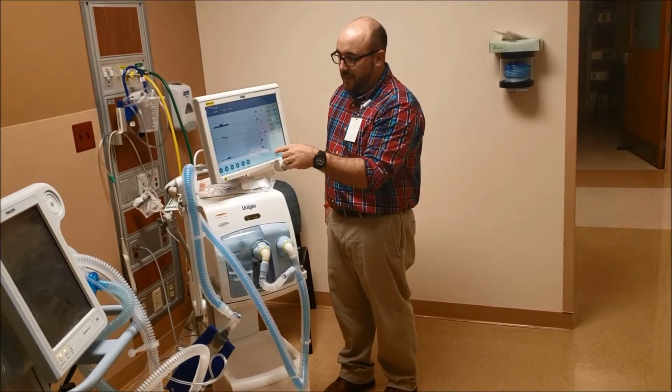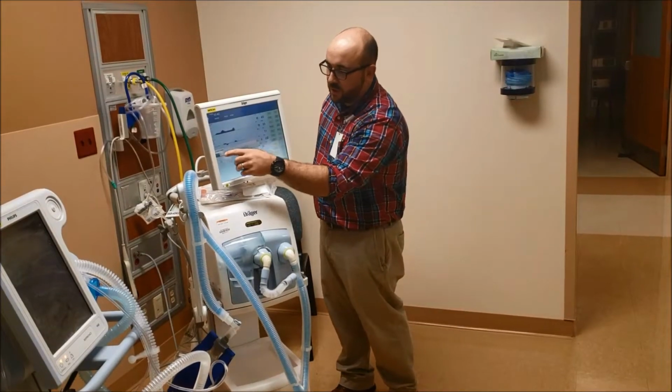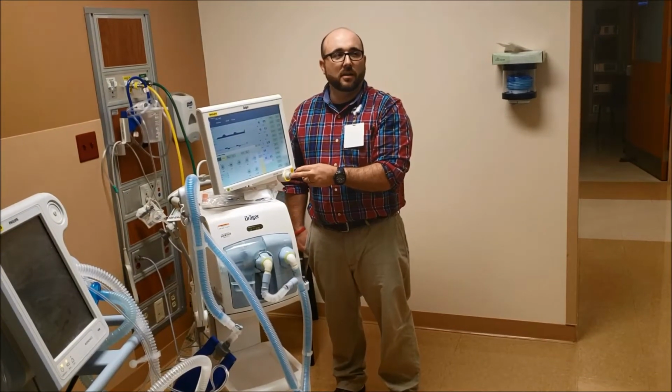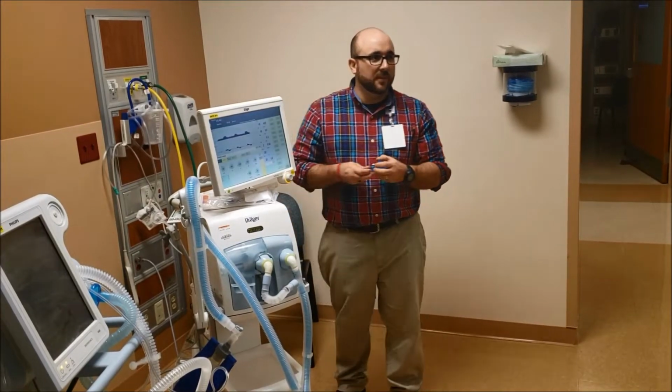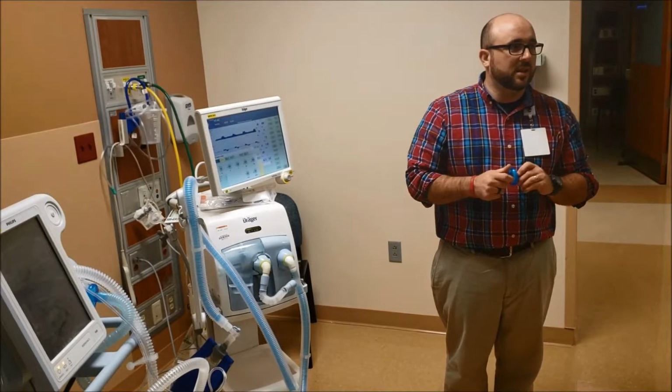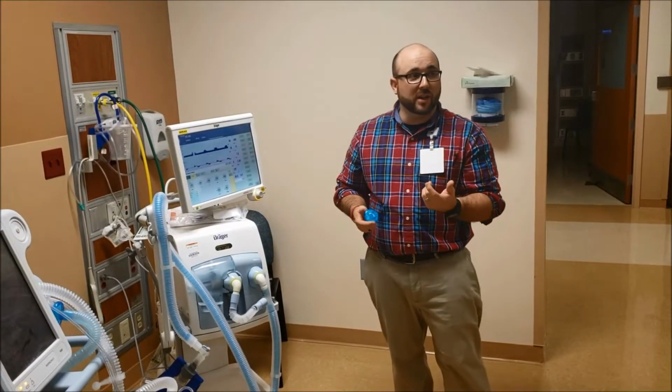So the main settings you guys are going to see are what? What's the setting? What do they ask for? When they give you settings, what's your 600? Yeah. Mode, the mode is SIMV. So that's synchronized intermittent mandatory ventilation.